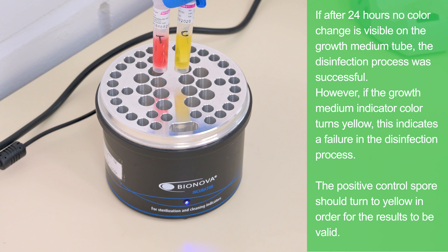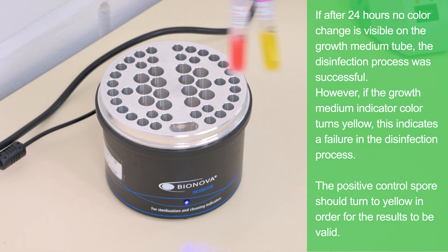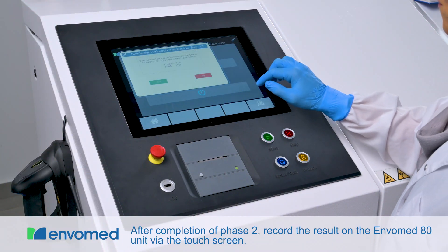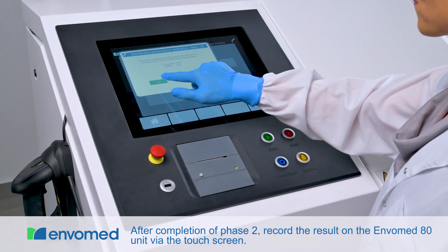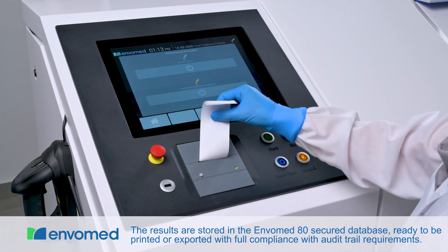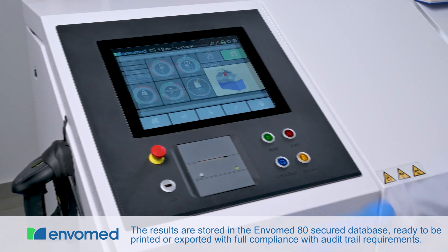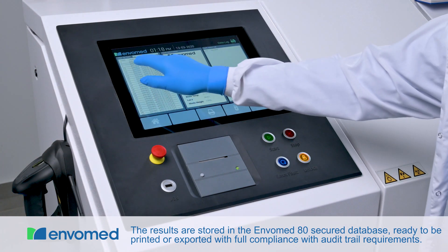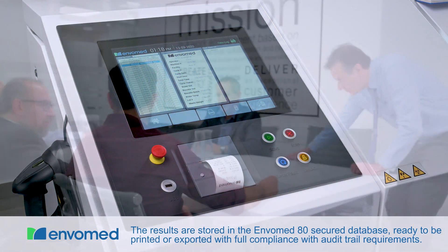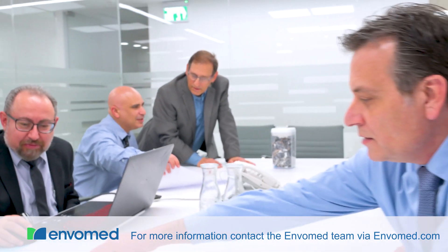The positive control spore should turn yellow in order for the results to be valid. After completion of phase 2, record the result on the Envomed 80 unit via the touchscreen. The results will be stored and documented in the Envomed 80 secured database, ready to be printed or exported with full compliance with audit trail requirements. For more information, contact the Envomed team via Envomed.com.